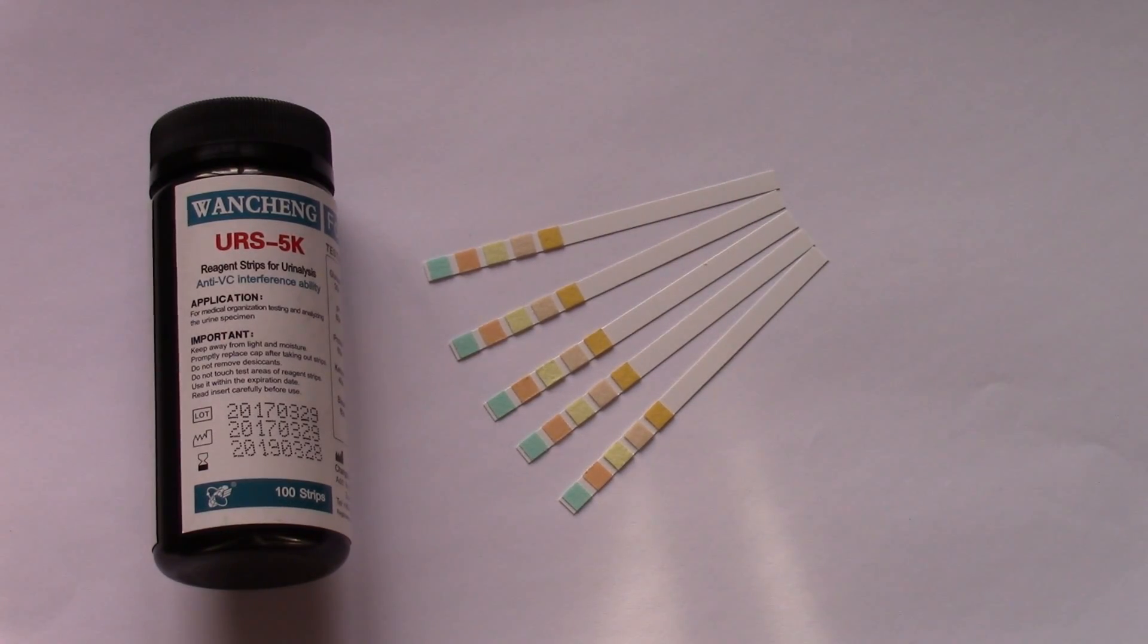You also need to check the expiry date and lot numbers on these. Fresher is better in general terms, so ones with a very long expiry date are always going to give you clearer, better, quicker, more accurate results than ones coming up to near expiry. Having said that, they should all be good to use within the expiry date.